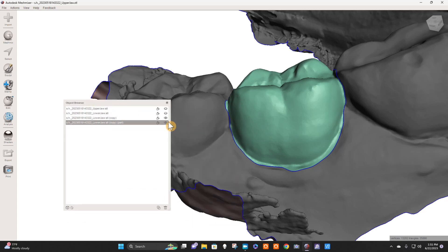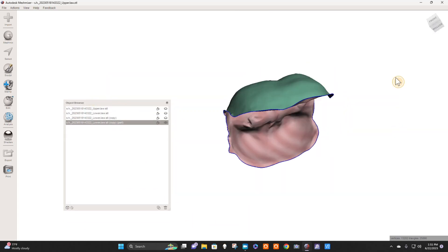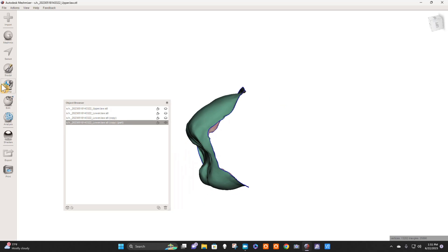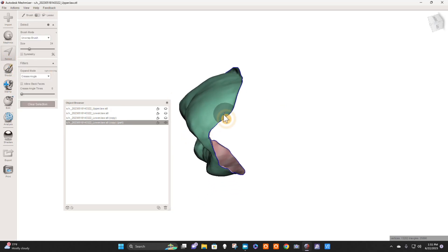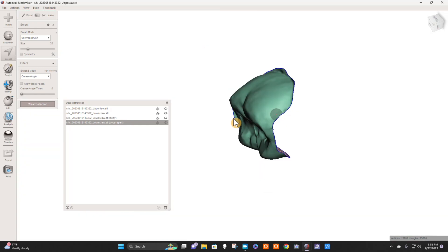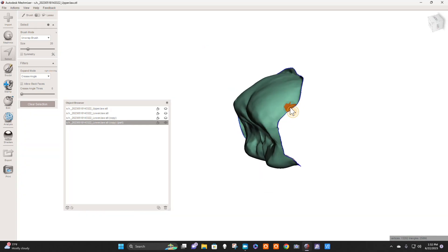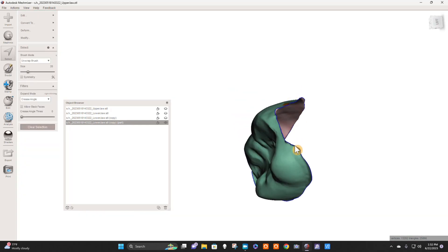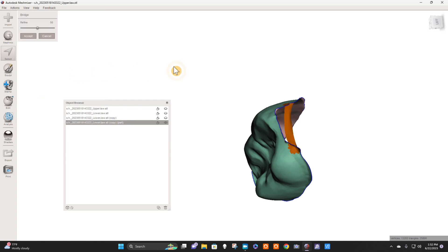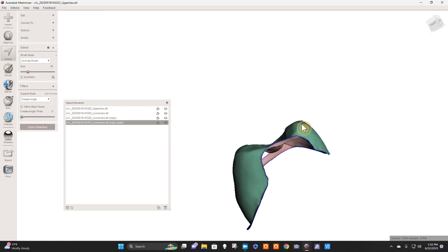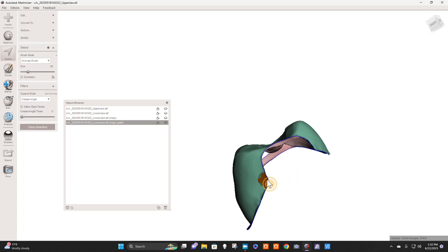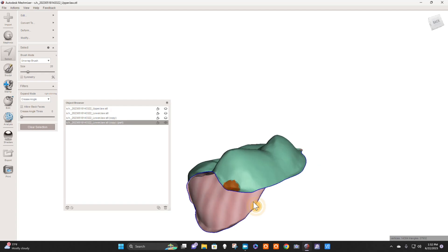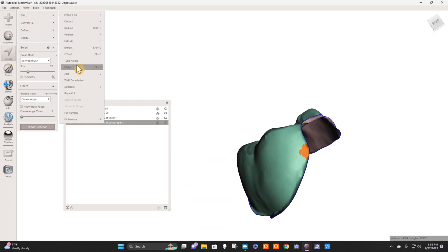It has its own mesh, so here it is. Then I'm going to fill this in. The way that I like to do it is a little more complicated because I like to come in here and create bridges at my CEJ area. Again, I'm going to clear that selection and hit Select right on the border here with no holes. See, it's right up to the blue line, and hit Edit Bridge, Accept.